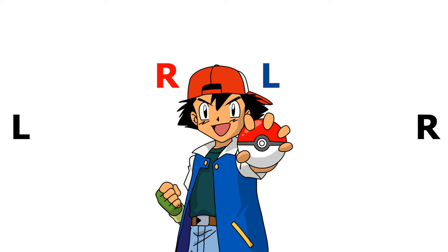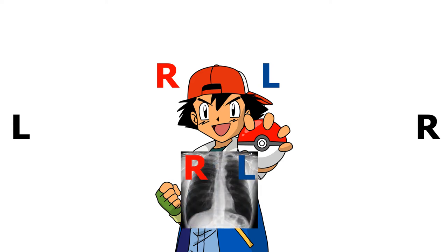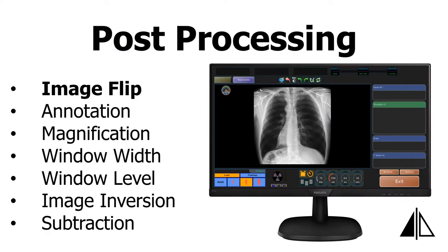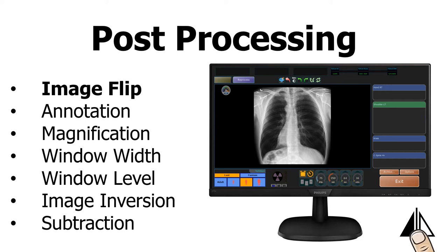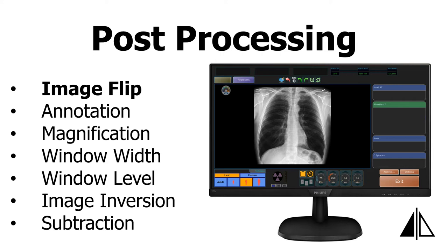Thus, when you orient the x-ray, you want the patient's left side to be on your right side field of view. When I took this x-ray, for some reason, the patient's left side ended up on my left side field of view. So, I will need to flip this image to get it oriented properly. You can also flip an image horizontally.